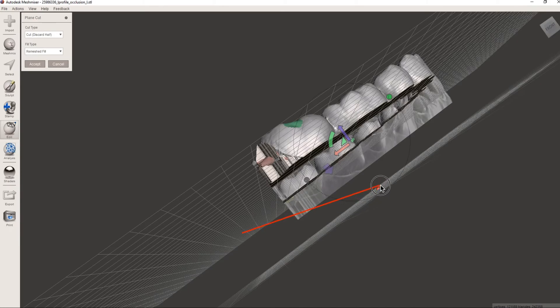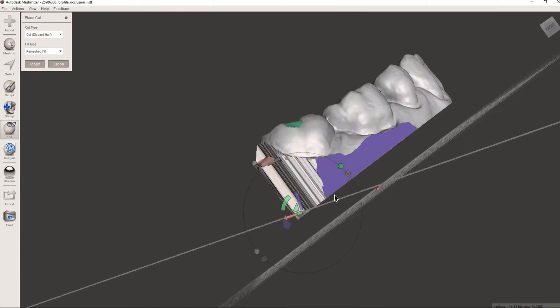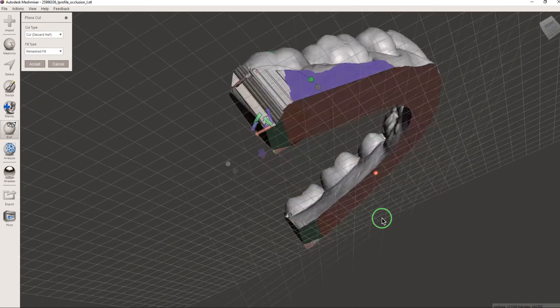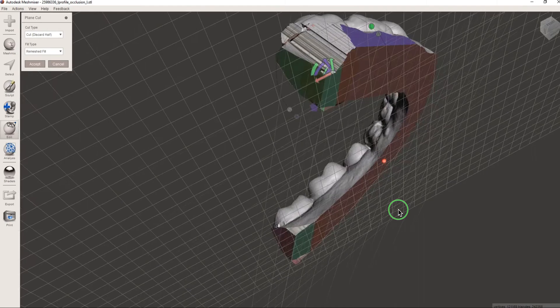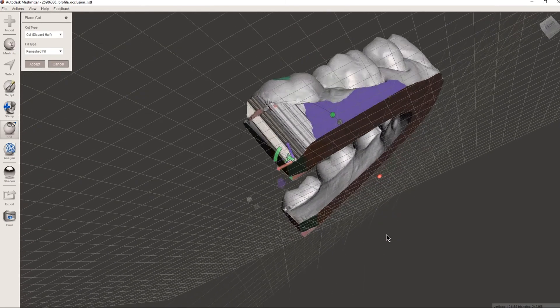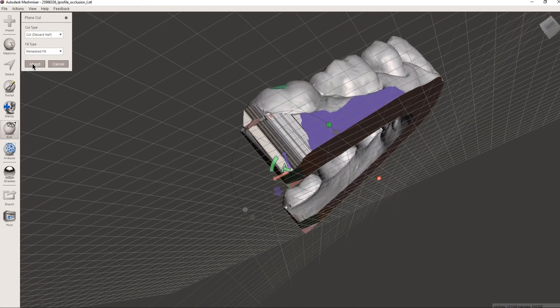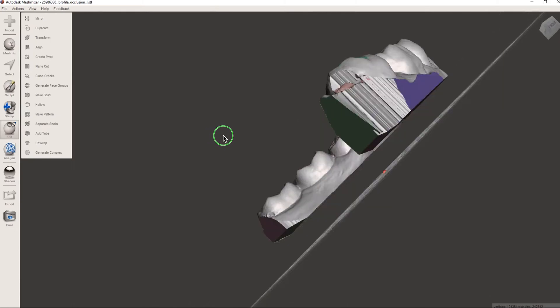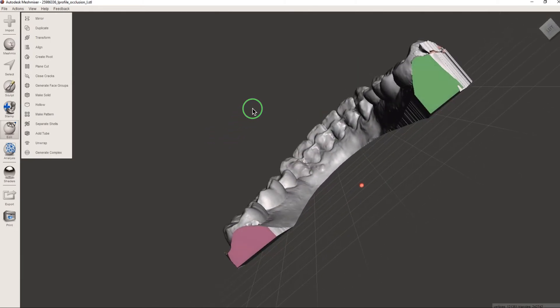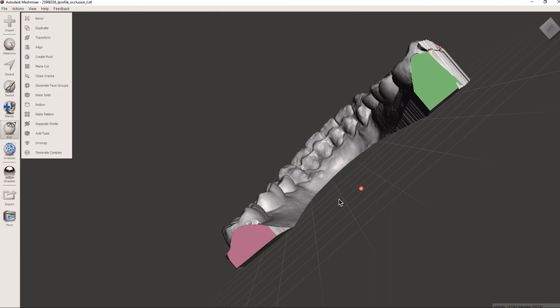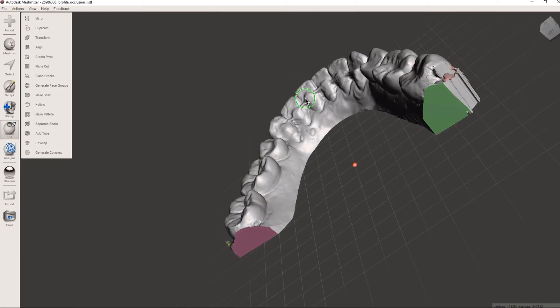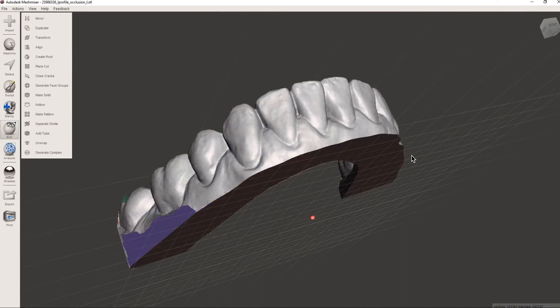So do a little slice. Again, left click, drag over, flip that. And you can see that it's nice and green on both sides. So now we accept it. The reason we did that is so when we are ready to break it off the plate, our knife will slide right underneath and pretty much pop it off pretty easy. So model's ready to print at this point.